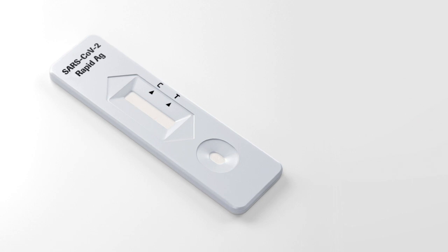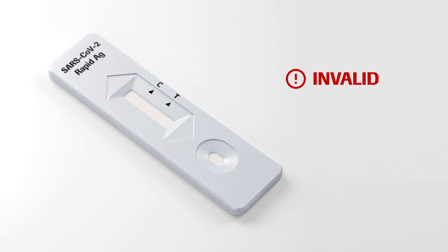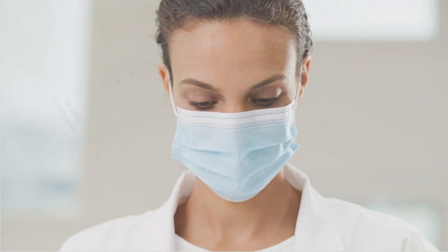If no control line C is visible, the test is always invalid. For diagnostic purposes, the results should always be assessed in conjunction with the patient's medical history, clinical examination and other findings.